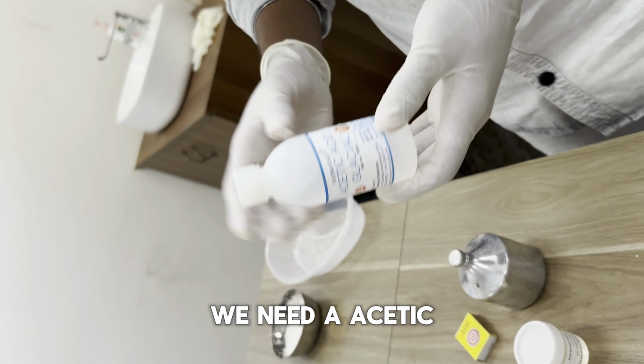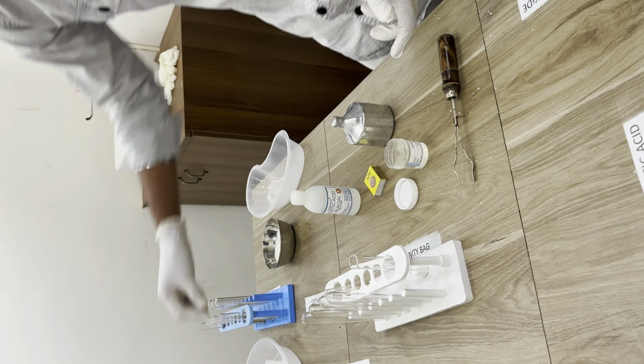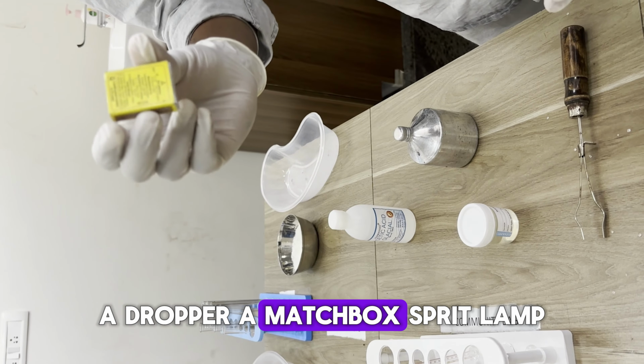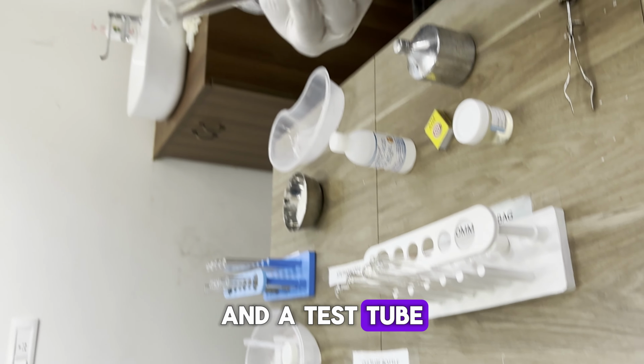Required equipment to perform this test: we need acetic acid, a urine sample container, a dropper, a matchbox, spirit lamp, a test tube holder and a test tube.